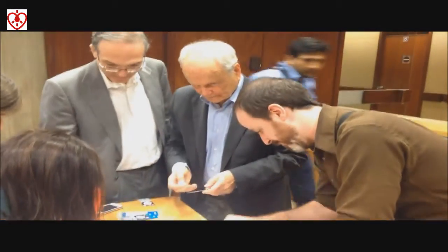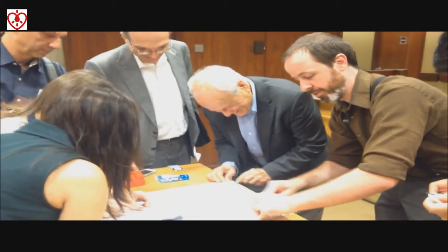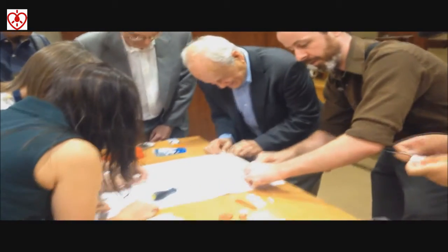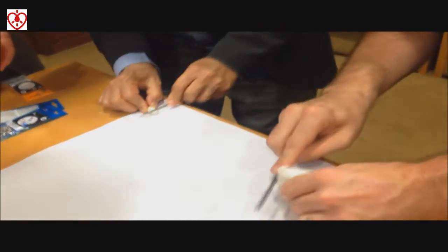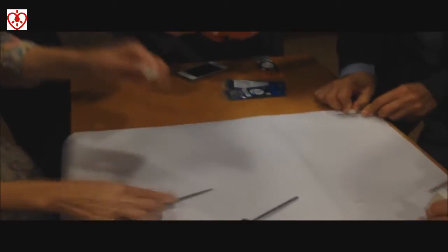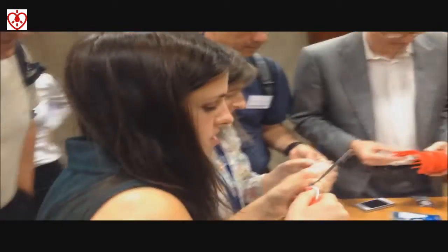I need to hurry up on my part here. Eric, could you explain what you're doing? Certainly — we're having a little group session where we're learning how to build a prosthetic hand from printed parts. Another way to look at it: we're helping a child. This is going to go on a seven-year-old little guy named Nunu.